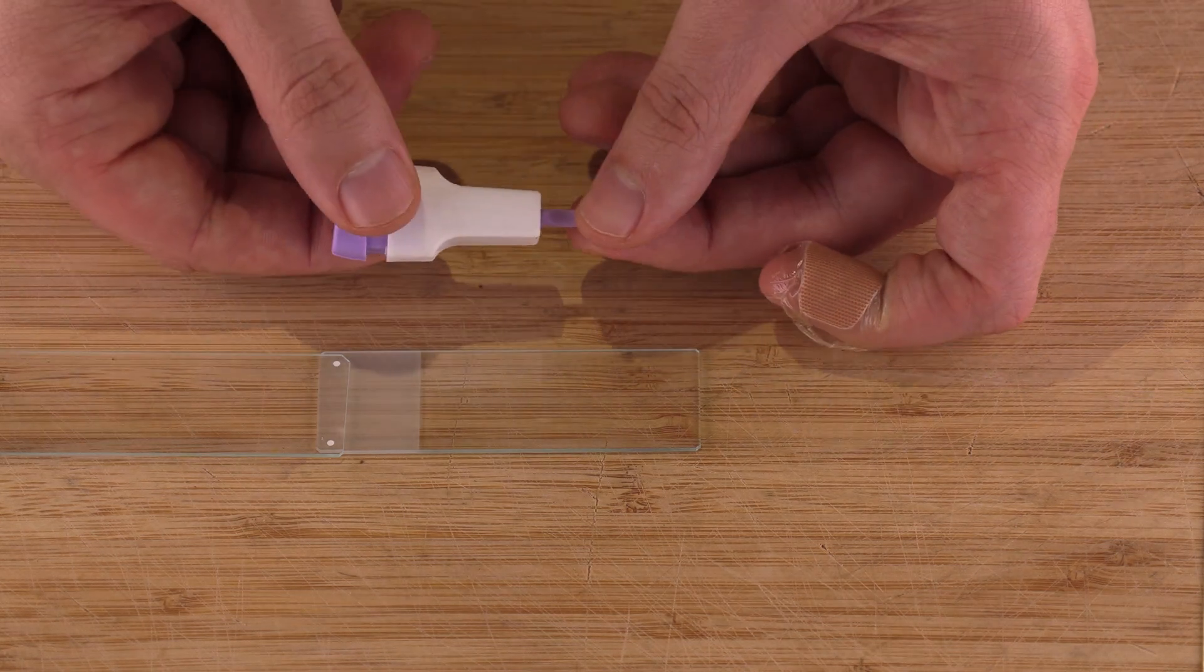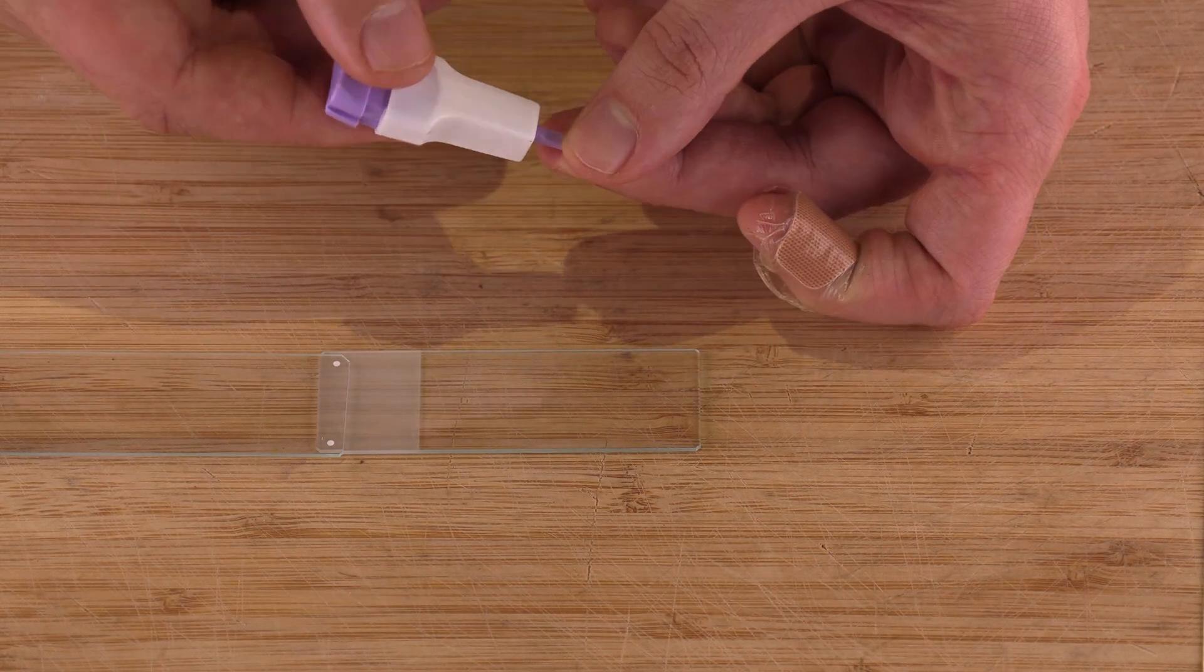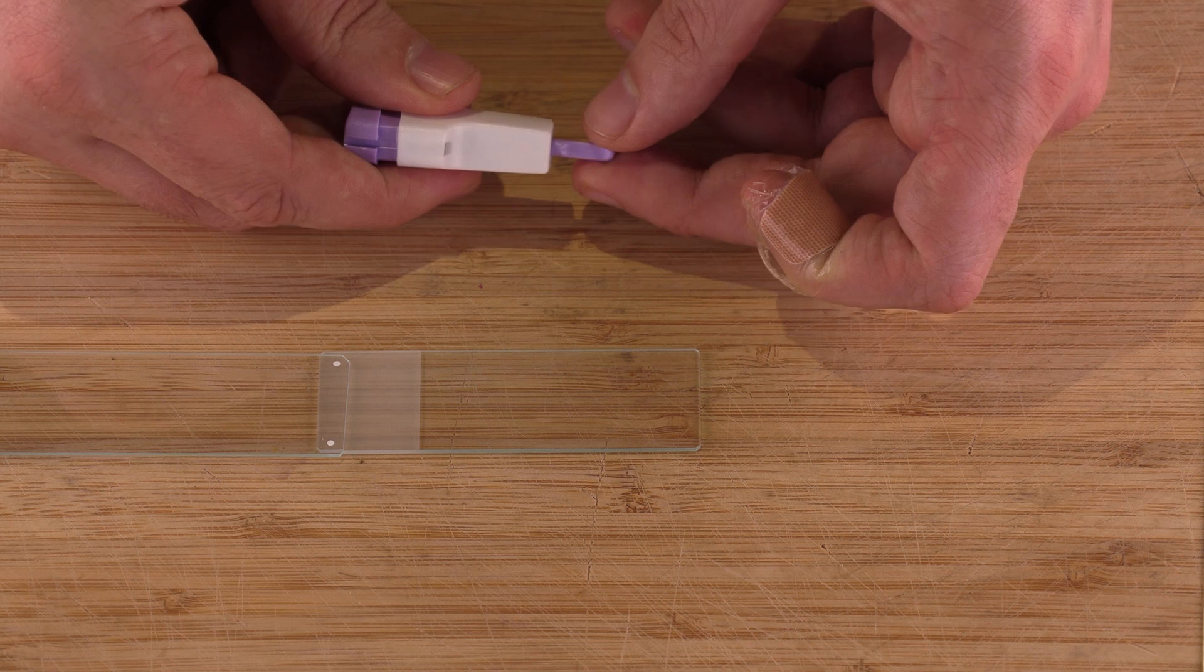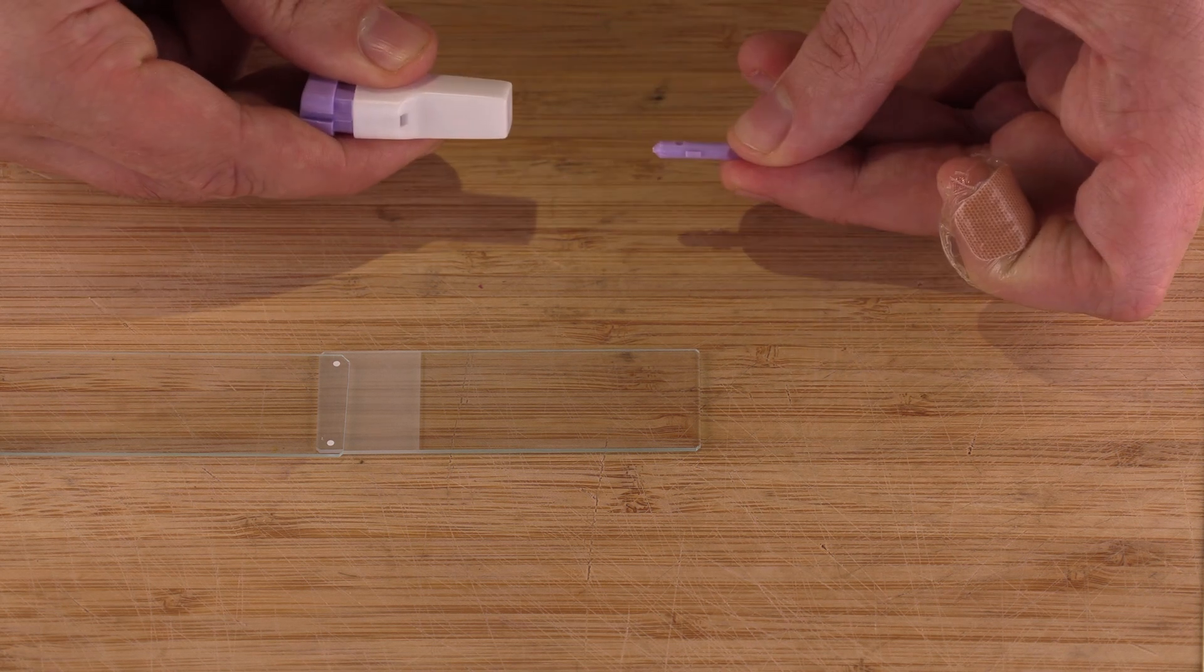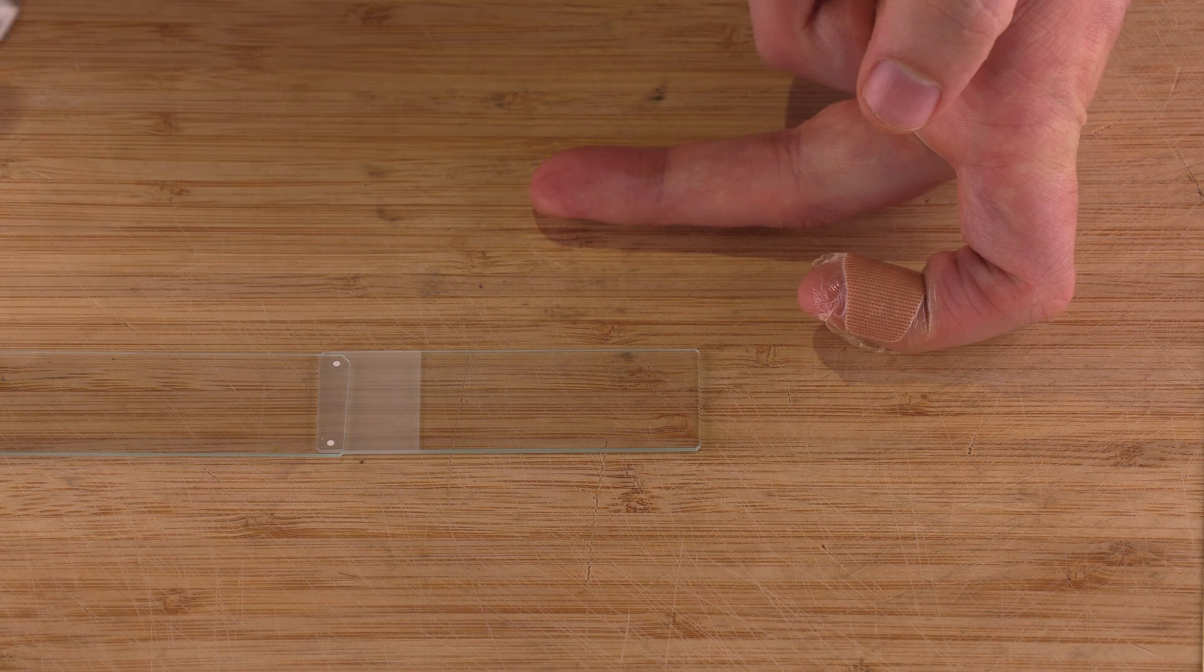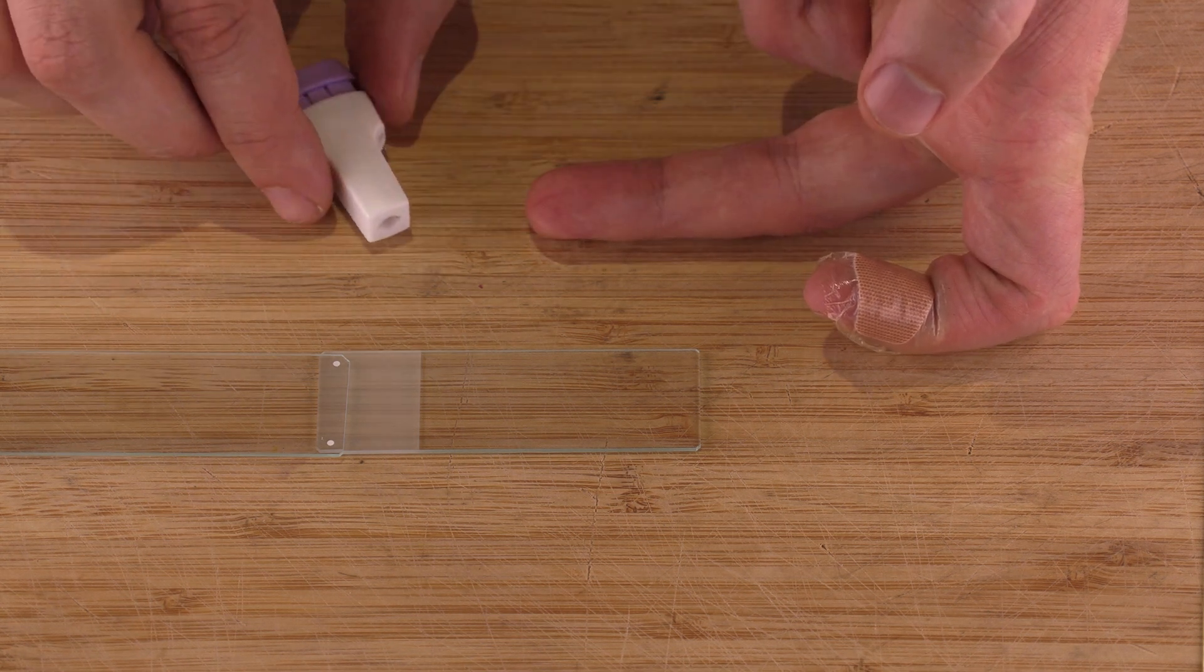Alright so first I've got this little purple finger prick thing. So I twist the bottom purple thing, pull it out, set it down, and I'm just going to be ready for it.